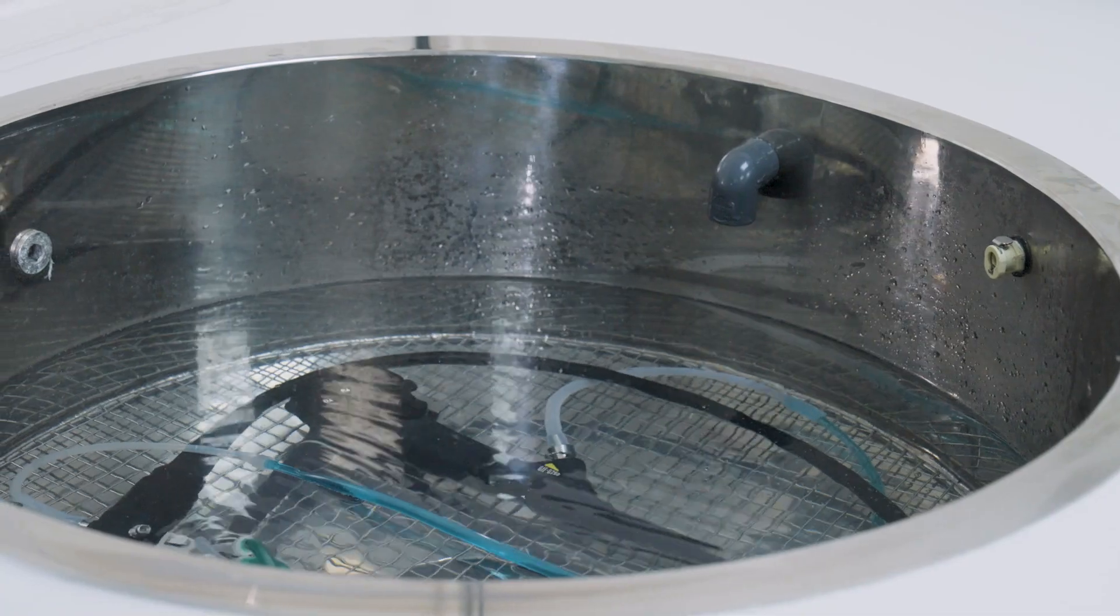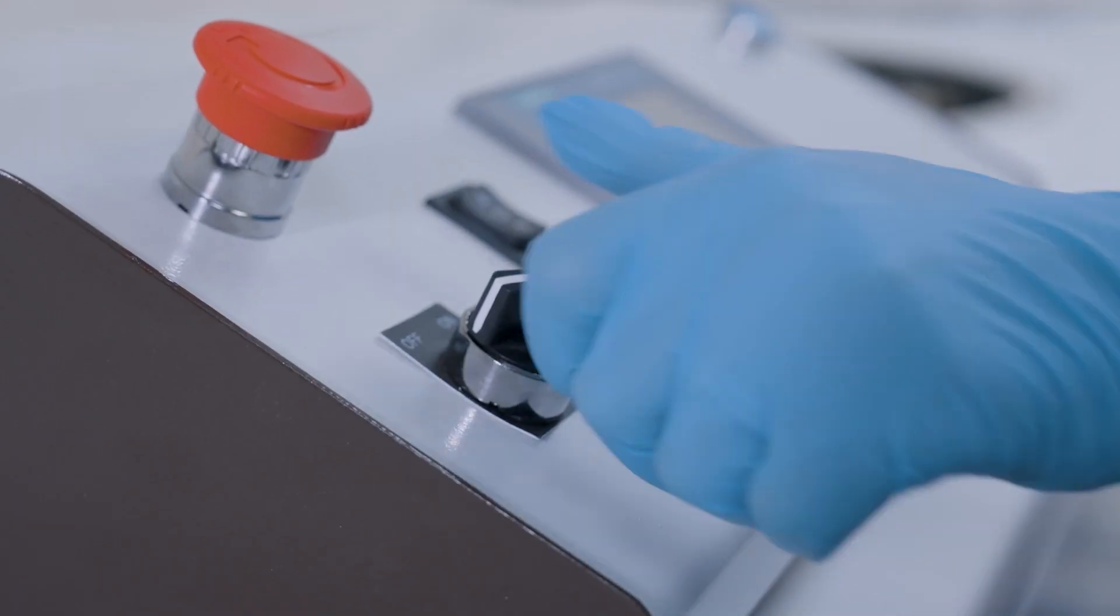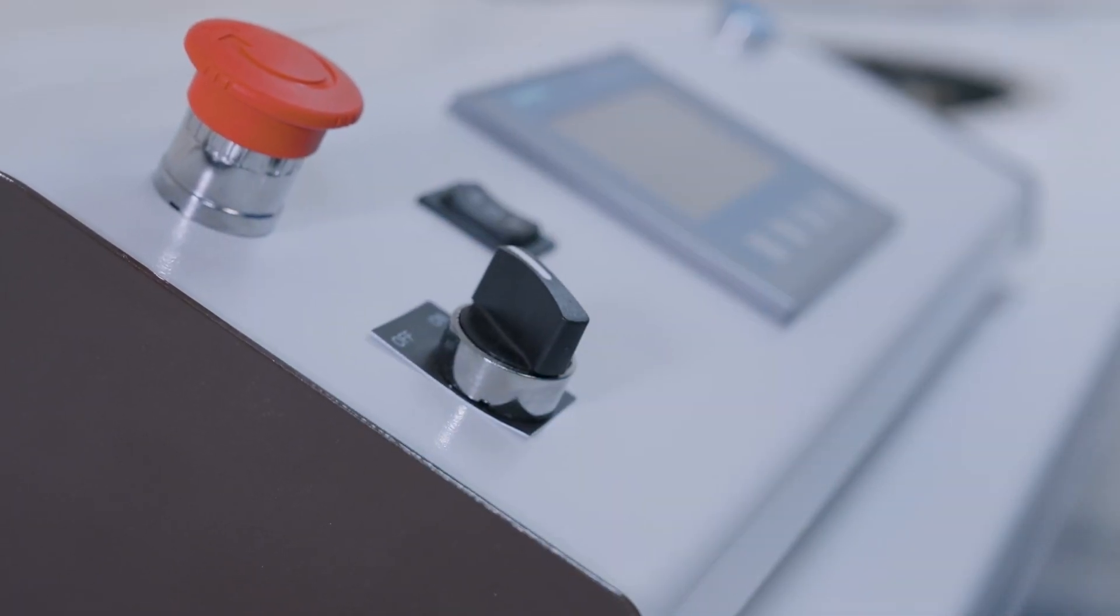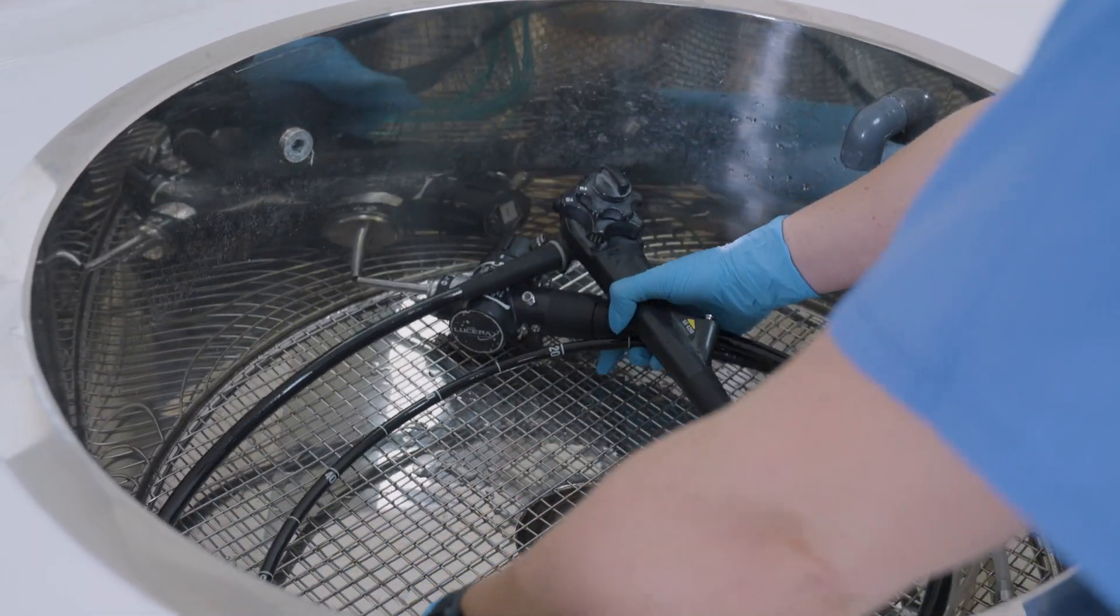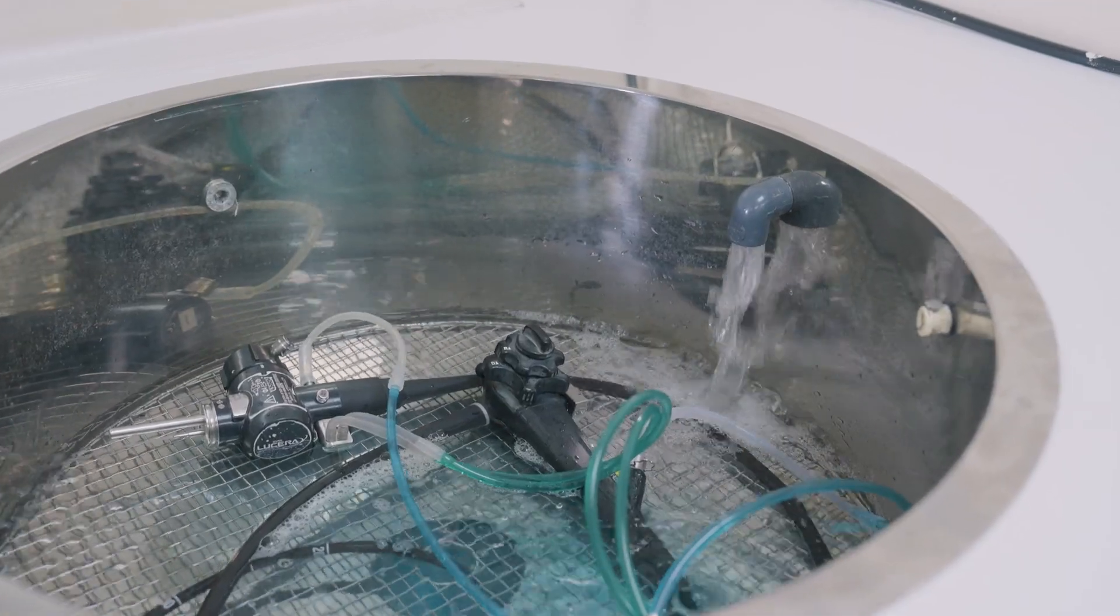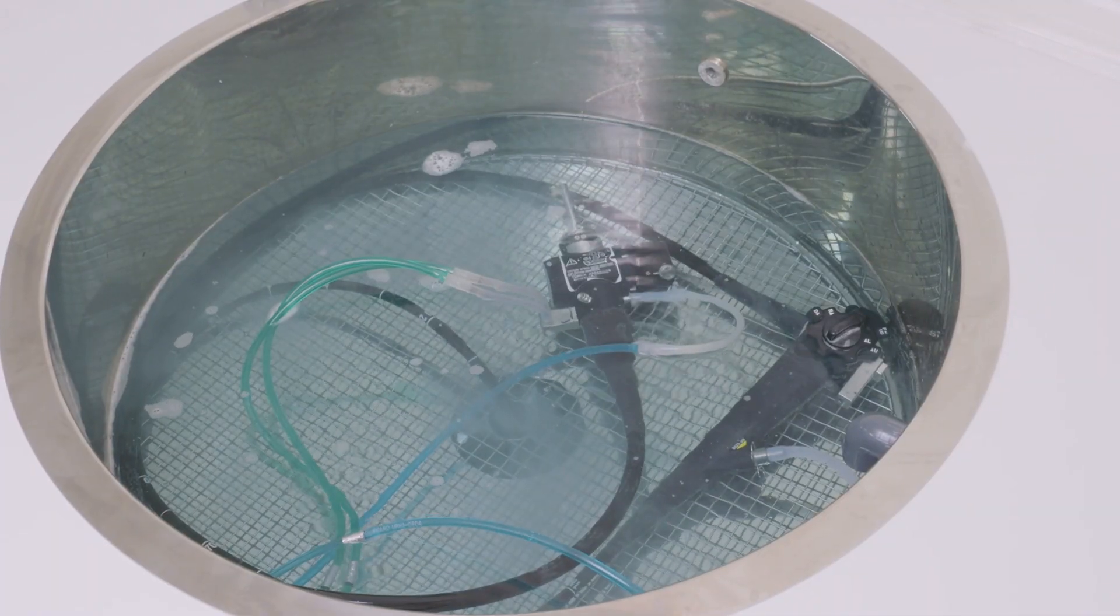Over the years there have been many peer-reviewed papers which have demonstrated the almost impossibility of being able to manually clean an endoscope. These papers have shown that one in six duodenoscopes thought to be patient safe and ready for use are still contaminated.